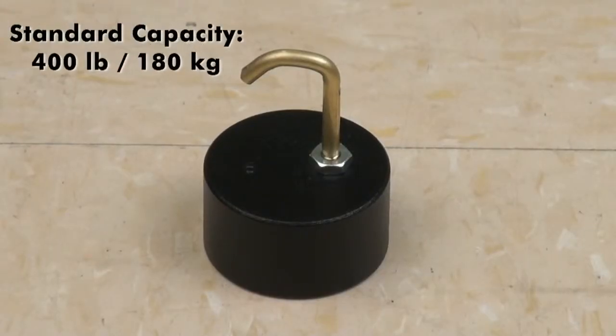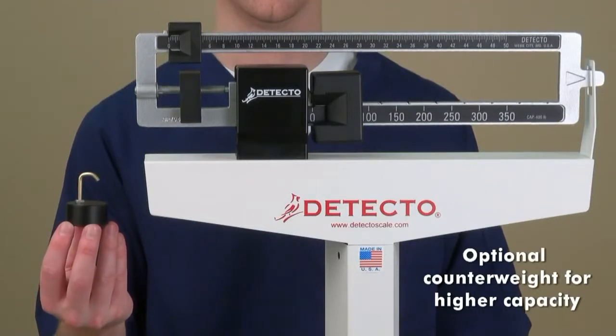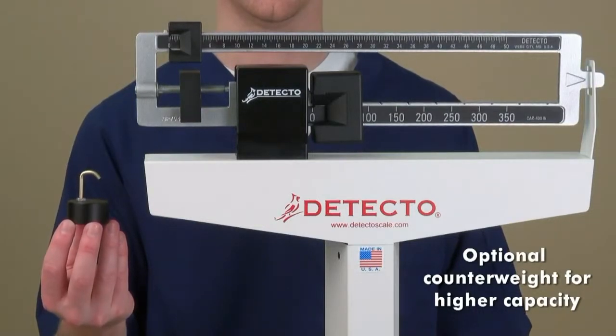With a capacity of 400 pounds or 180 kilograms that may be increased to 500 pounds or 220 kilograms with the inclusion of an optional counterweight, these scales can suit the needs of most physicians.